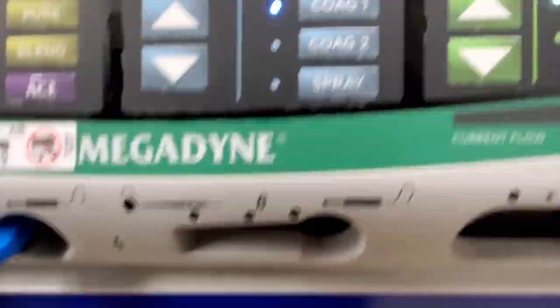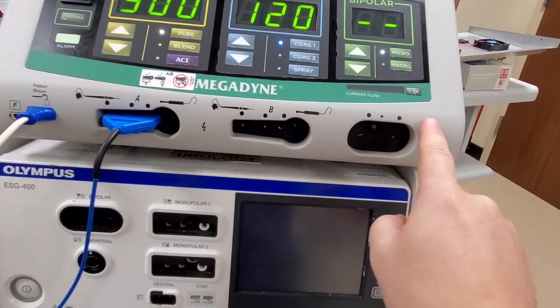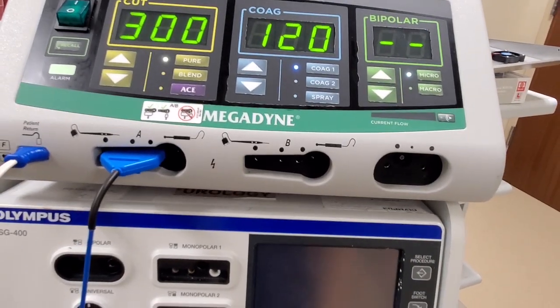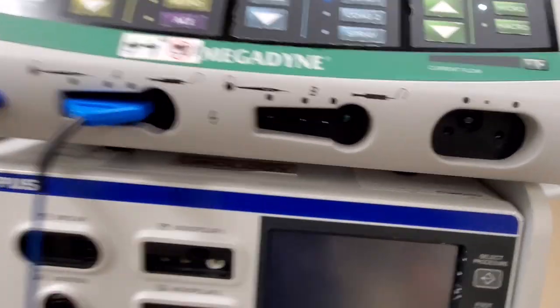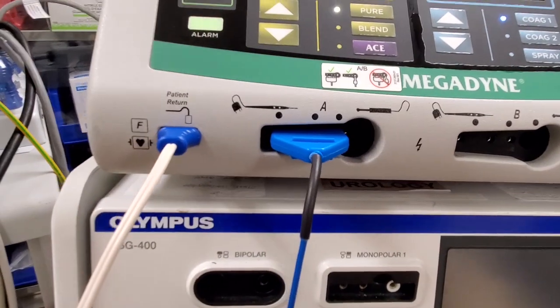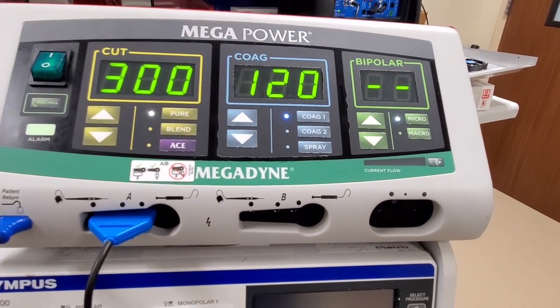You've got to wonder how were those sockets loose, because the Phillips screw on each side that holds that bar in place were tight. The only way that normally those would get bent is from an impact from something that's plugged in, but there's no pin damage — all the sockets look like they're good. So now we've got to wonder what went on with this guy, and was that from the factory?